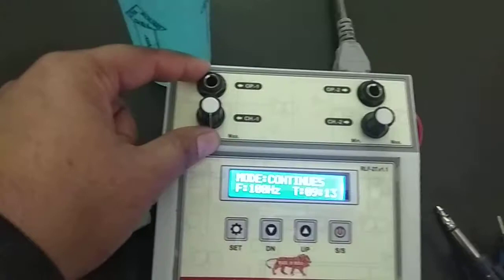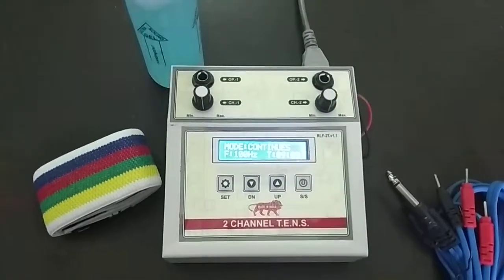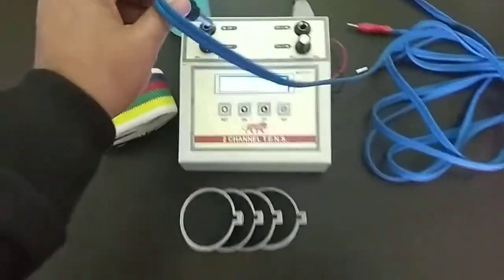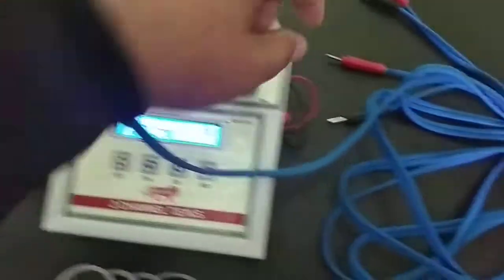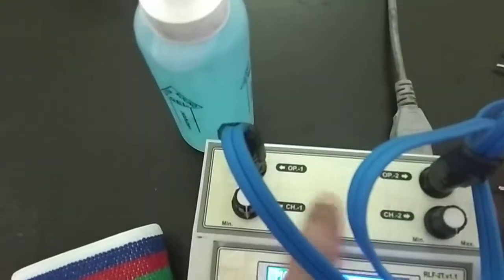Now I am going to apply output wire into the knobs. I plugged in the wires. This is channel 1 and this is channel 2.